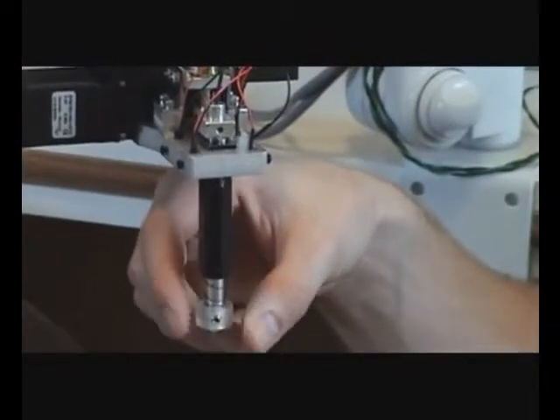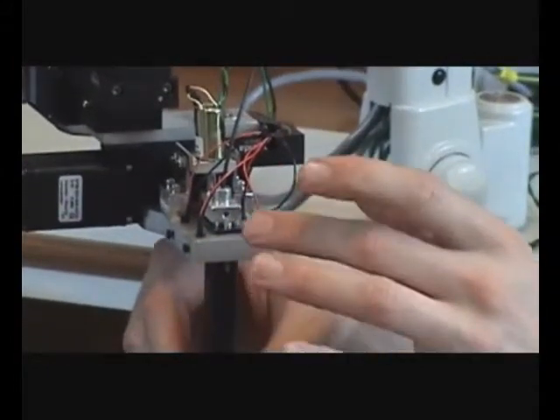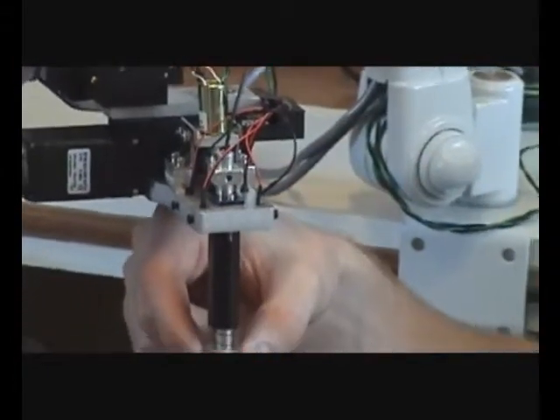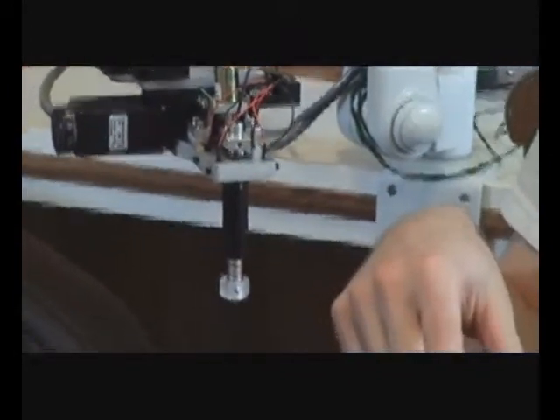The post is suspended using both a spring and a solenoid actuator. As the stage displaces, this will move up and down so that it lifts off the skin and then comes back in contact for scanning.